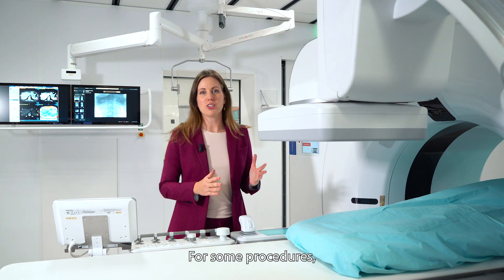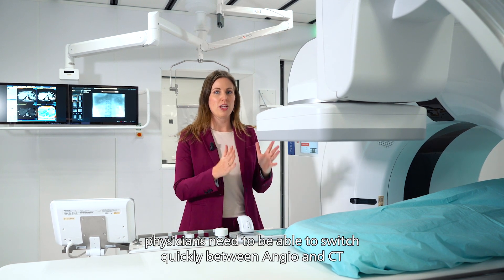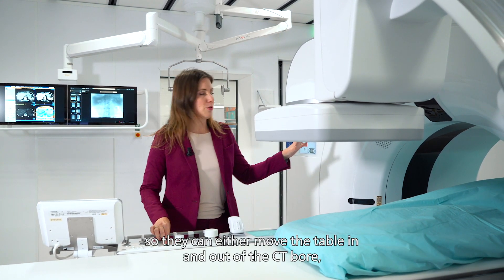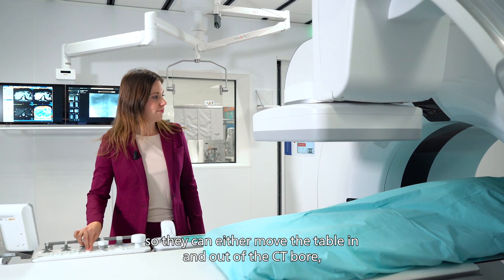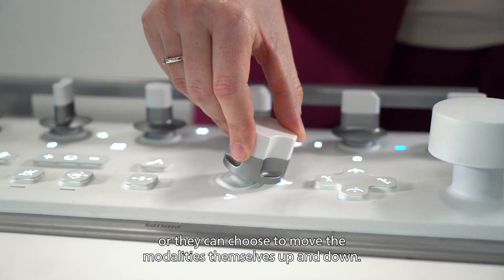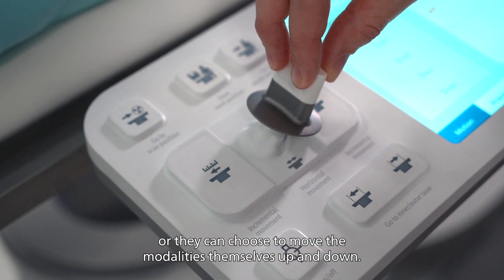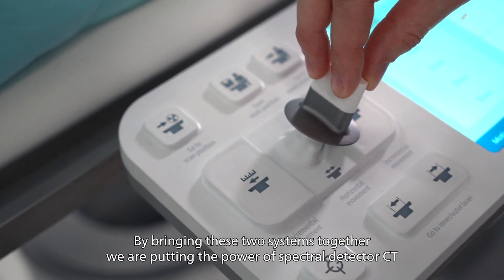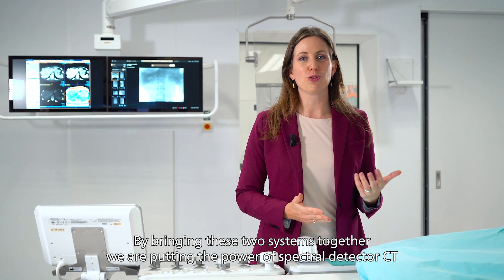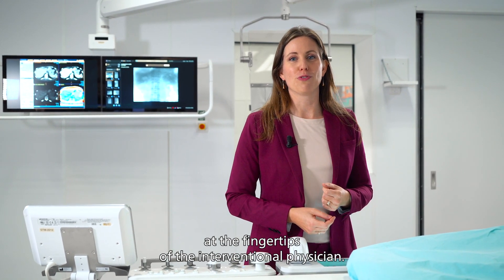For some procedures, physicians need to be able to switch quickly between angio and CT, so they can either move the table in and out of the CT bore, or they can choose to move the modalities themselves up and down. By bringing these two systems together, we're putting the power of spectral detector CT at the fingertips of the interventional physician.